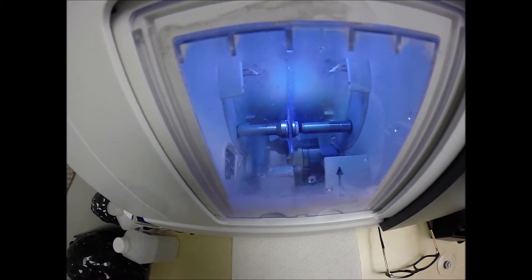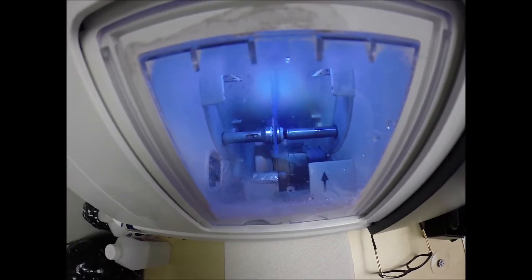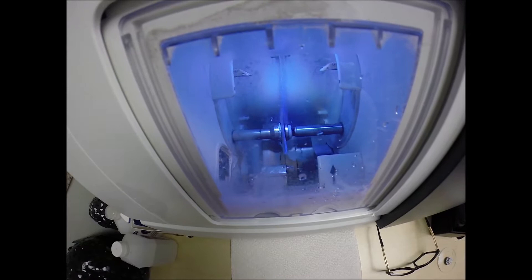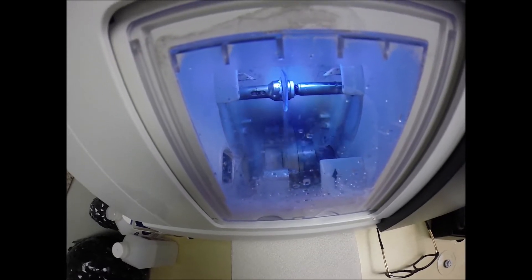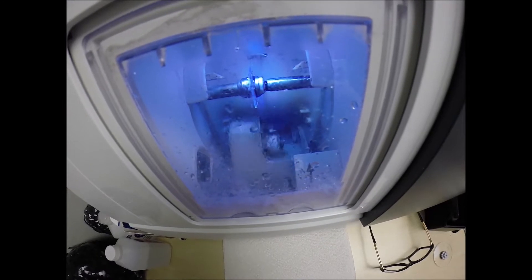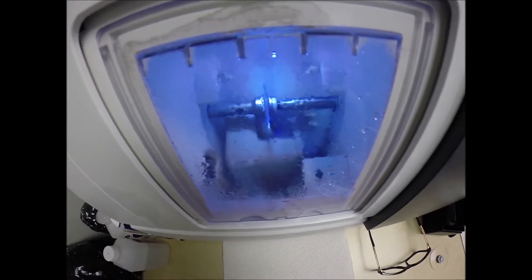The other feature is that, the second feature goes by the initials ARC, anti-reflective coating, so it reduces reflections. When someone's looking at you, they're not looking at their reflection on your glasses. It makes for much better eye contact. Or, if you take a selfie, you're less likely to see your phone in the lens. Or, if someone takes a picture of you with a flash, you're less likely to see that.